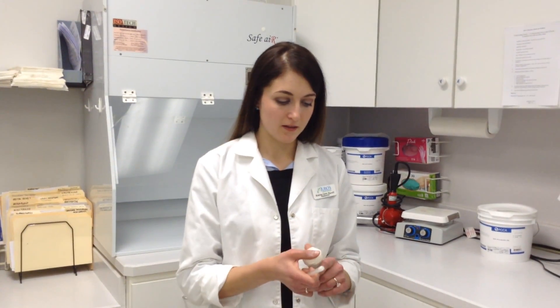Recap your ToppyClick and wash the applicator in warm soapy water. Leave out to air dry. It isn't safe to put into the dishwasher.